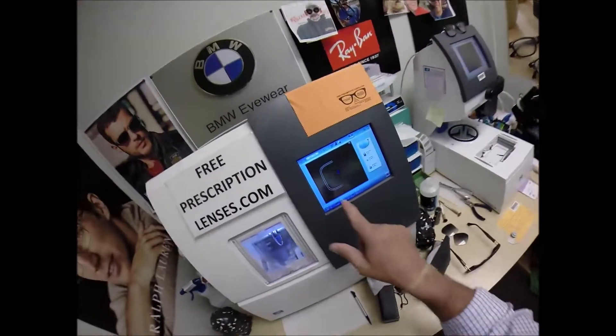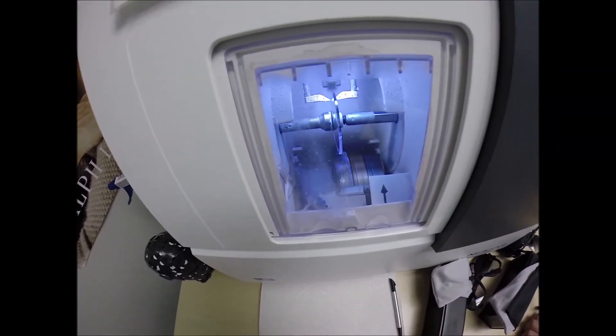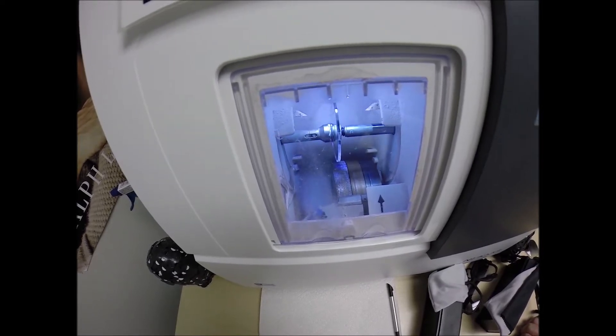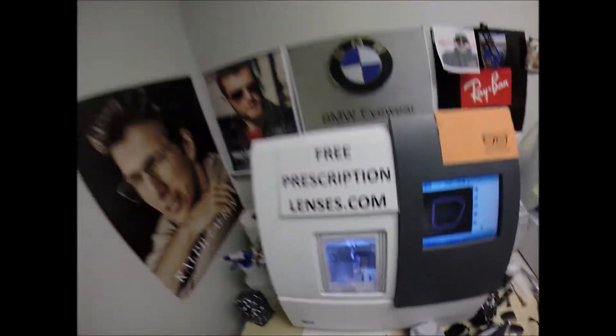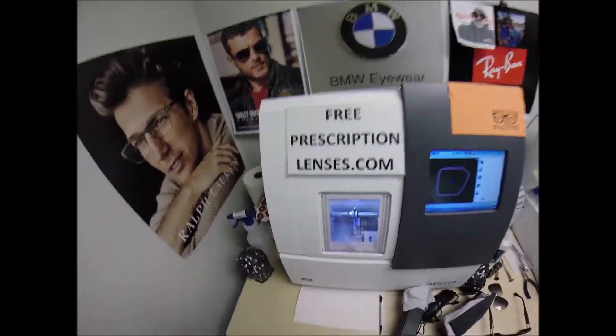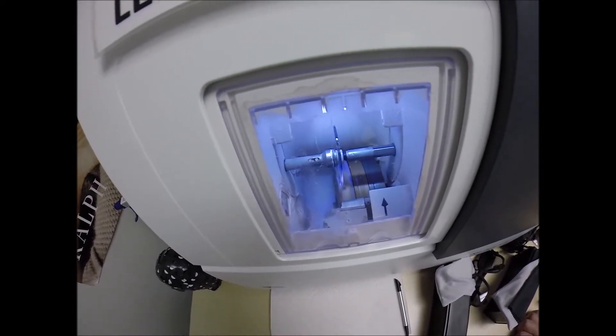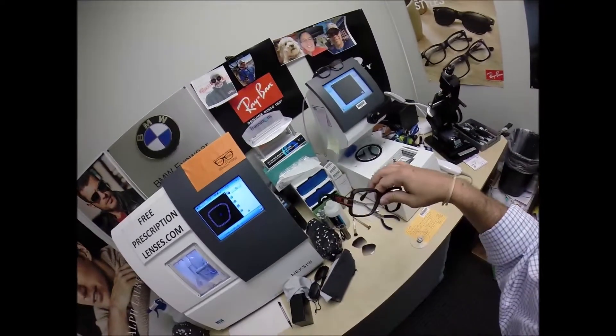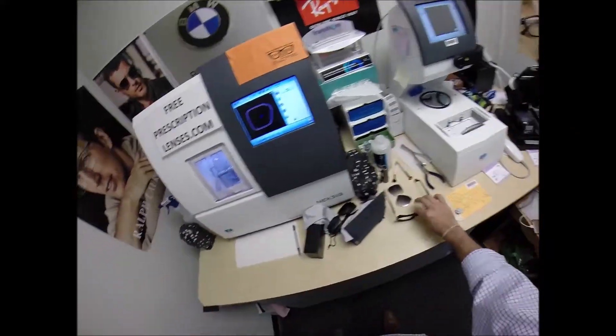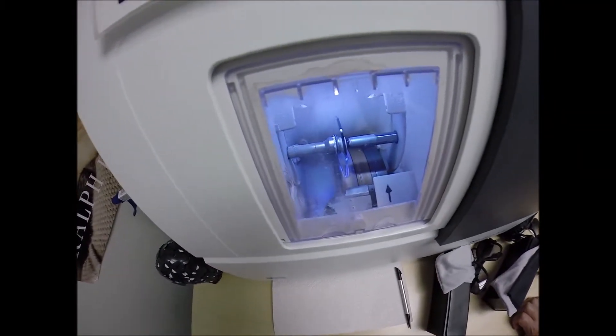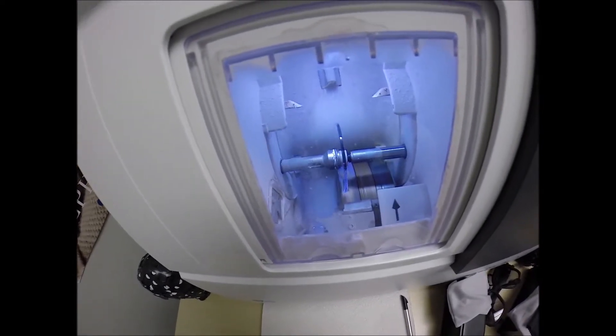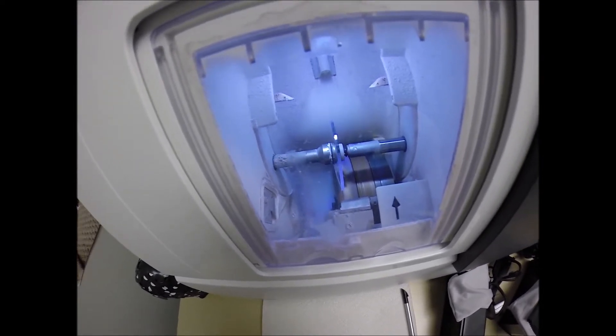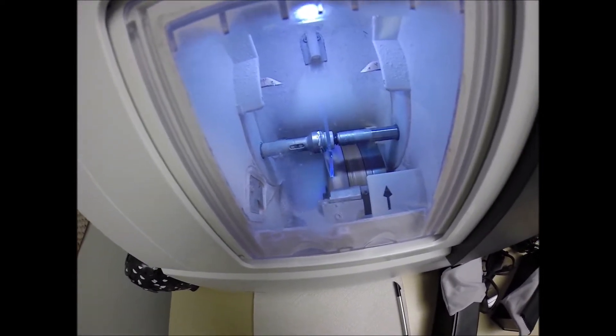The lens is going to be traced by two white styluses, making sure that it's large enough to fit into the frame. You can see this is tracing the shape of the right lens. And then measuring the thickness of the lens at every point to know exactly and precisely where to place the bevel so you have the least amount of edge thickness showing, of which you really shouldn't have any in this frame. Now I do cut very strong prescriptions all day long for free, and that is a little bit more critical with the higher powers. The larger the frame, the propensity to have thicker lenses.